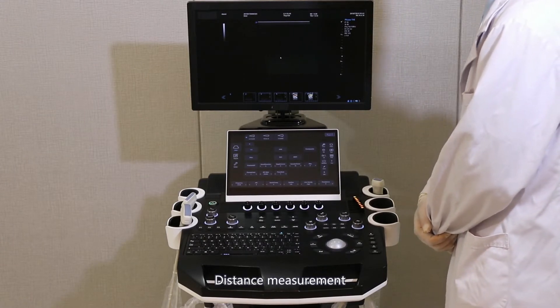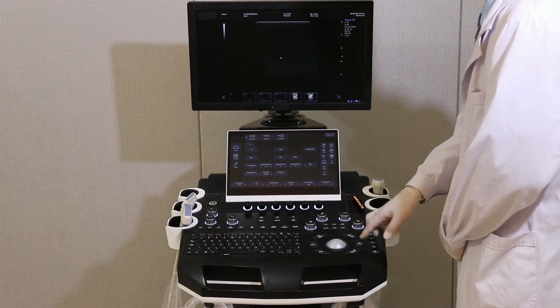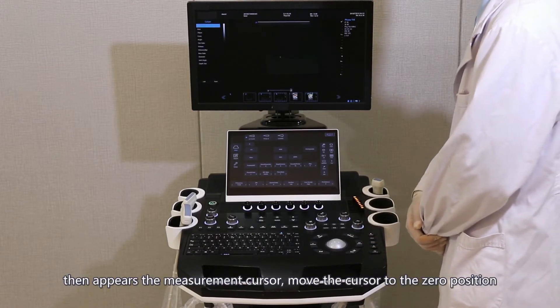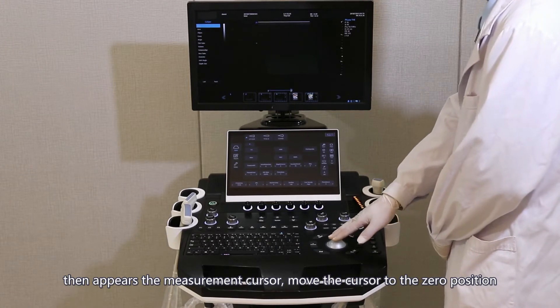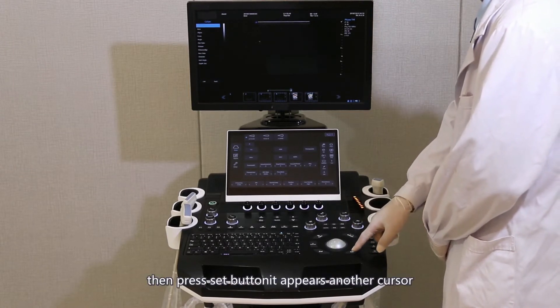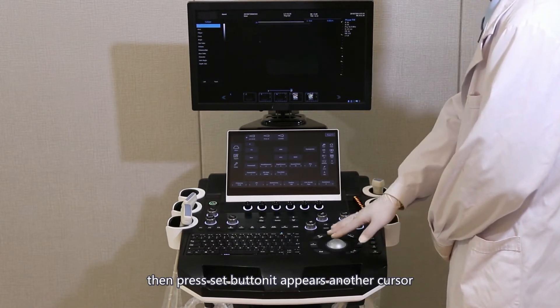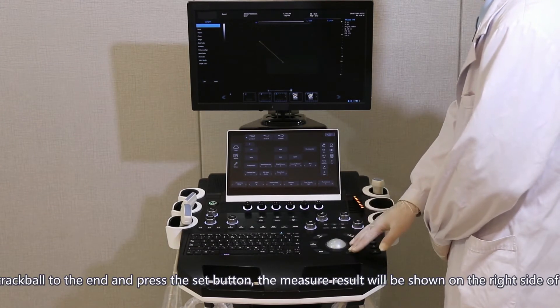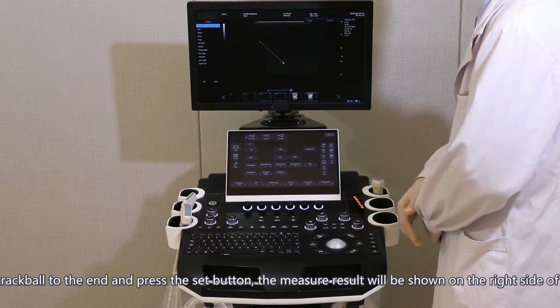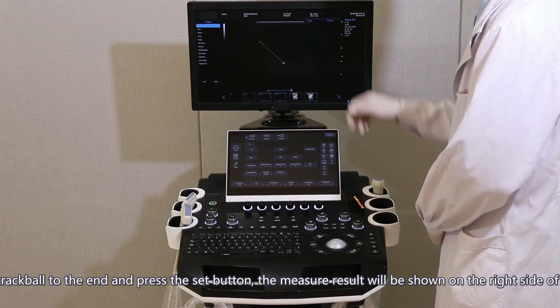Distance measurement: press the Caliper button; the measurement cursor appears. Move the cursor to the zero position, then press the Set button — another cursor appears. Move the trackball to the end and press the Set button. The measurement result will be shown on the right side of the screen.